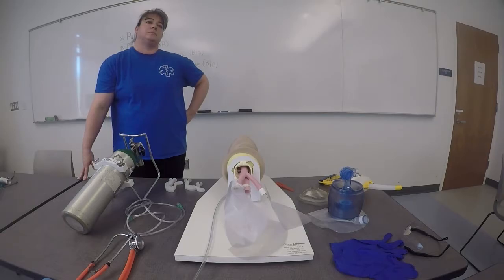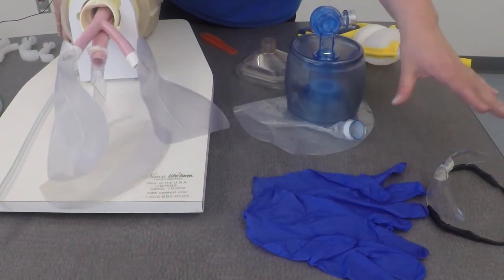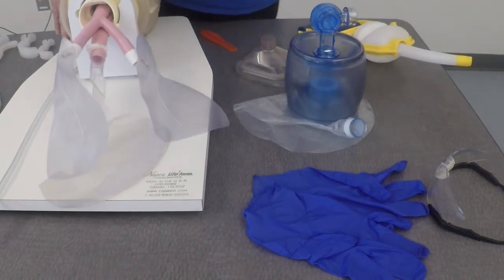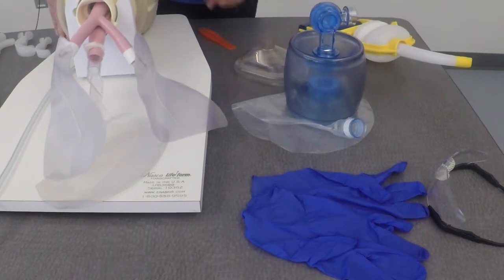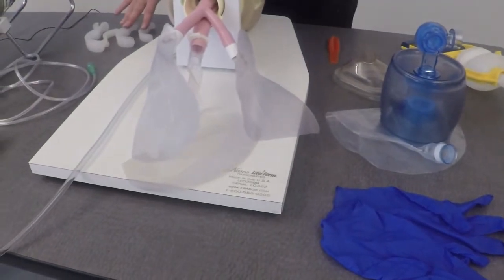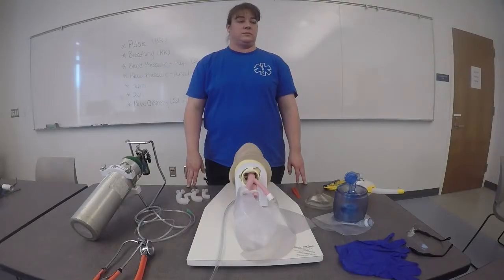Please take two minutes to check your equipment and prepare whatever you feel is necessary. I will make sure that I have my personal protective equipment, my gloves and my eye protection. I am not required to wear it when I demonstrate this skill, but it is available if I choose to. I also want to make sure that I have my suction device — I have chosen manual suction. I want to make sure that I have my BVM with reservoir and mask, my tongue blade, my oropharyngeal airways, also called OPAs, my oxygen tubing and a tank with regulator attached. I am prepared.